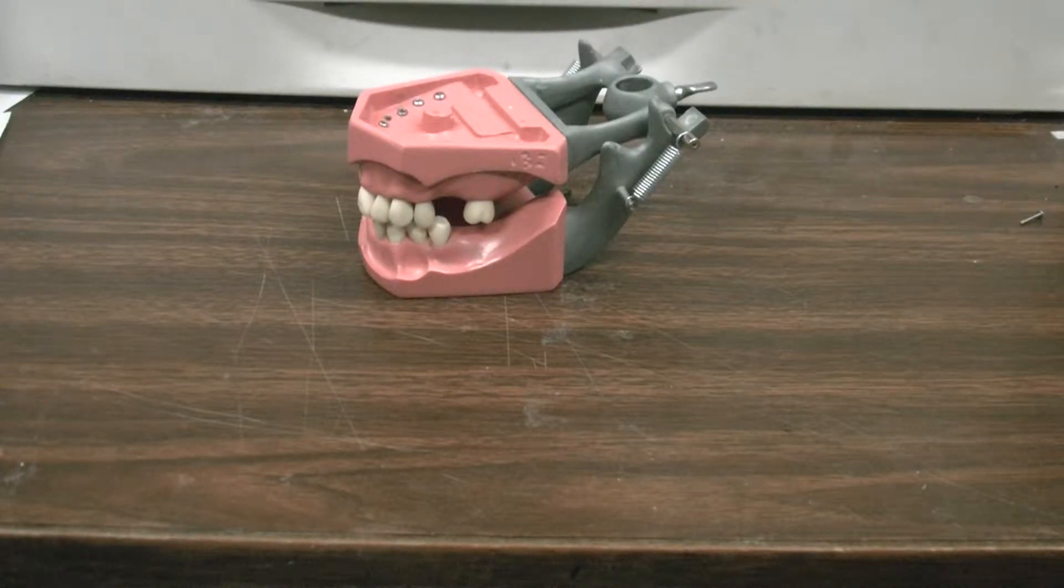Today I'm going to show you how to screw teeth into the removable typodon, otherwise known as the Columbia typodon.